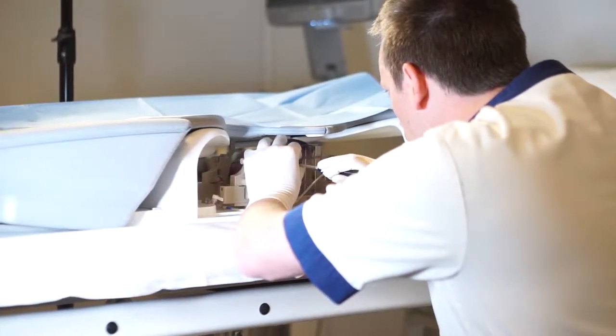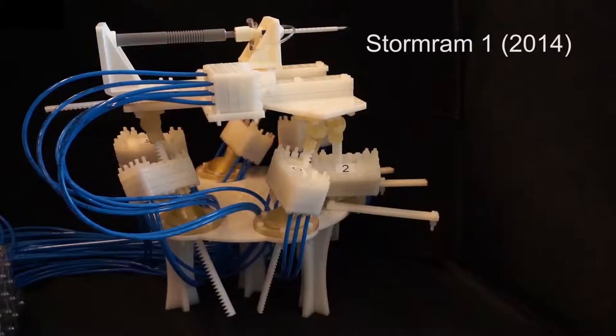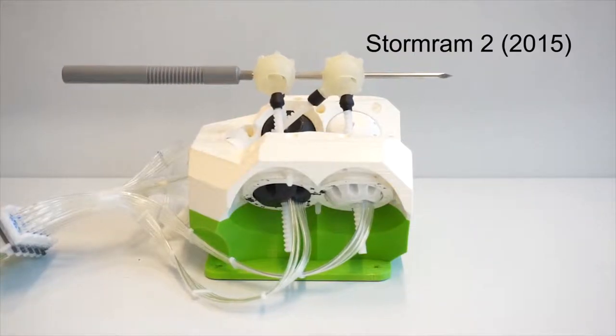A manual biopsy may be inaccurate, so several robotic systems have been developed with gradually improved specifications.